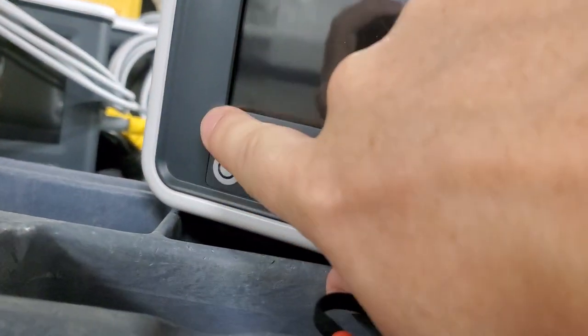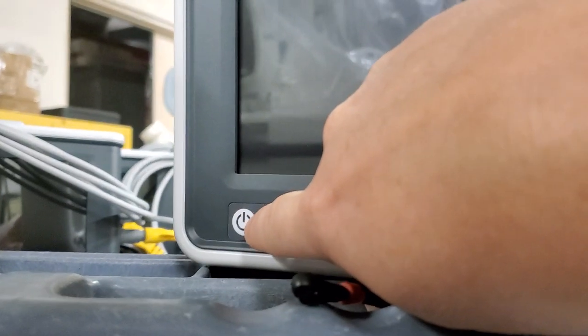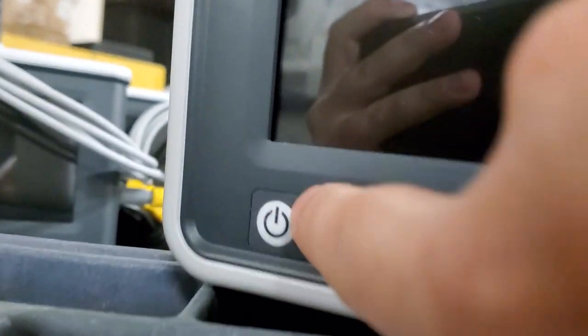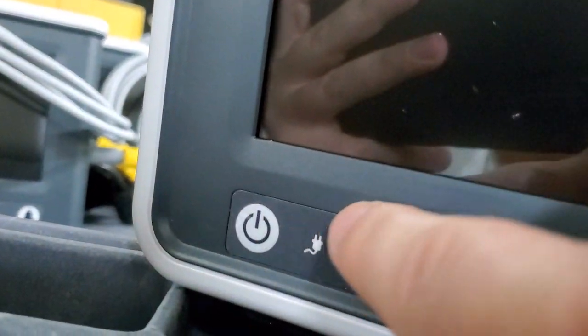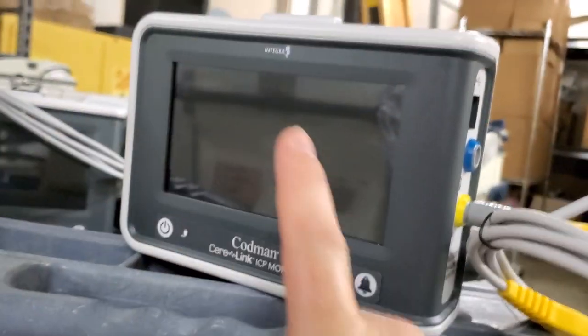It's got a button on the front, membrane button. Not a big fan of membrane buttons by the way. And I can tell right here that this membrane button has a sticker, adhesive sticker on the front. And that is probably going to lead to some fluid intrusion. It always happens on these. A little bit of fluid will seep down behind and corrode that button. That's a big no-no.